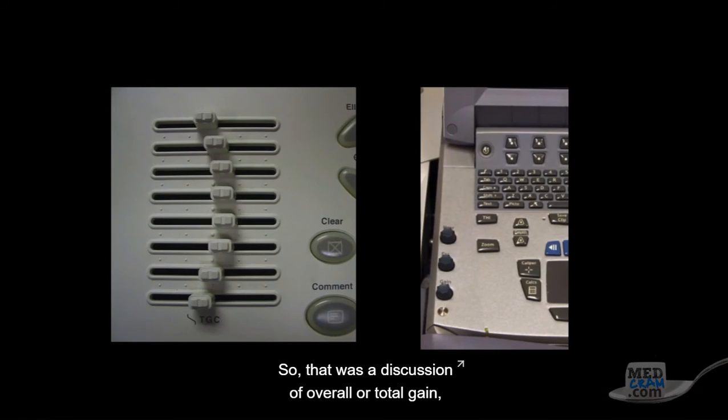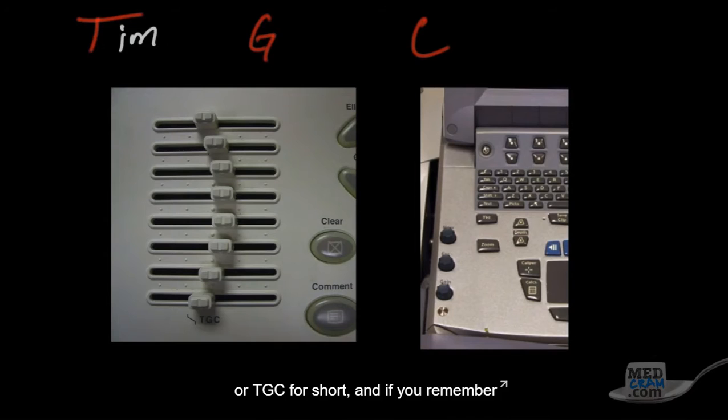Well, that was a discussion of overall or total gain, but there's something called time gain compensation, or TGC for short.